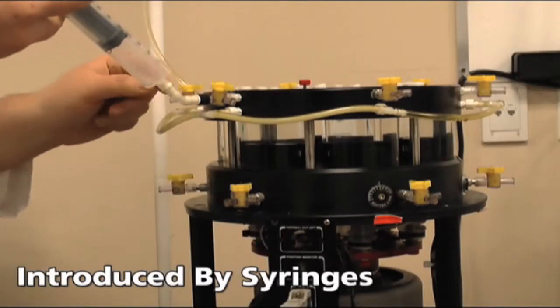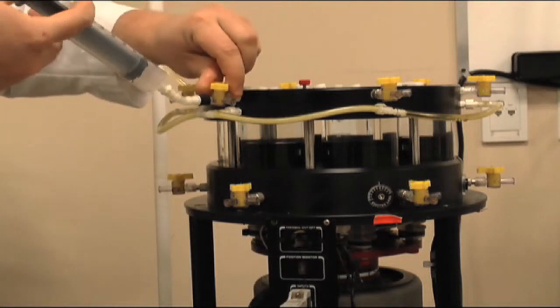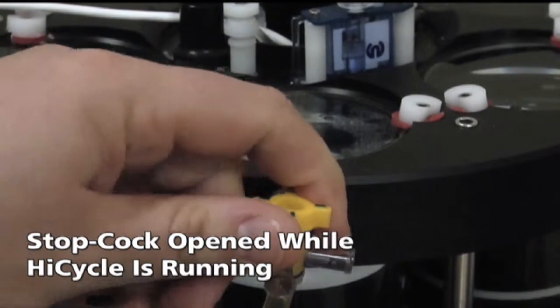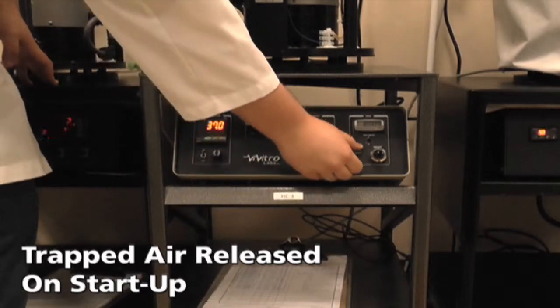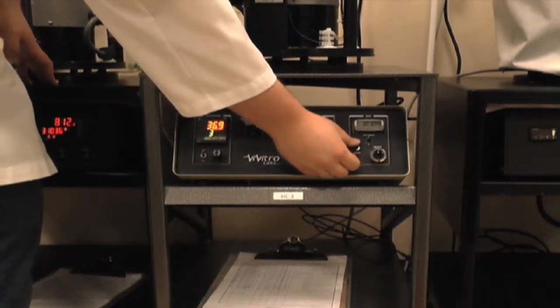Attaching syringes to remove air bubbles from pressure transducers can introduce more bubbles. Accidentally opening a stopcock to air while the HiCycle is running will allow air to get sucked into the chamber. When first filling the HiCycle with fluid, small air pockets can get trapped in the chambers and release on startup.